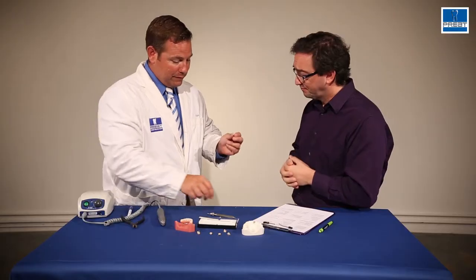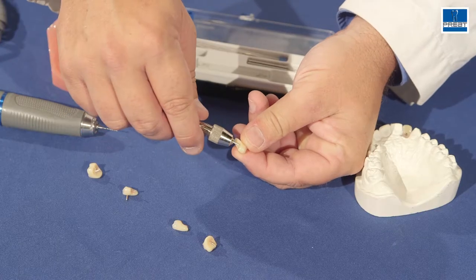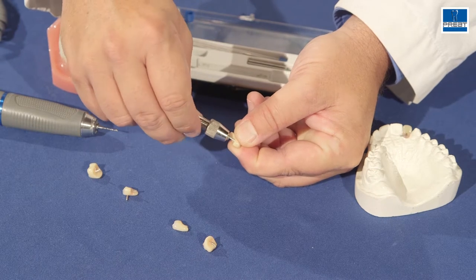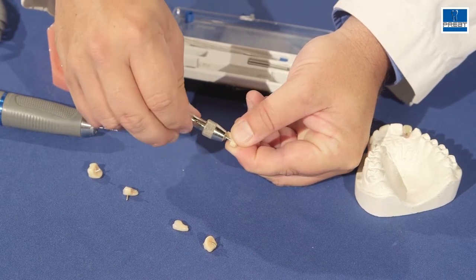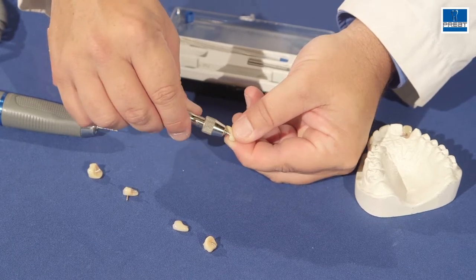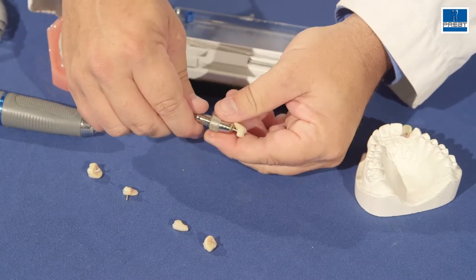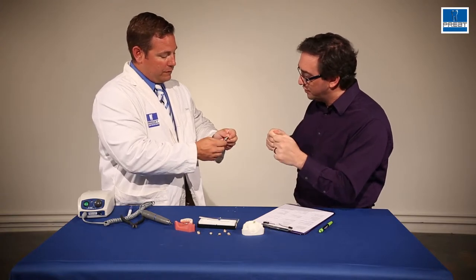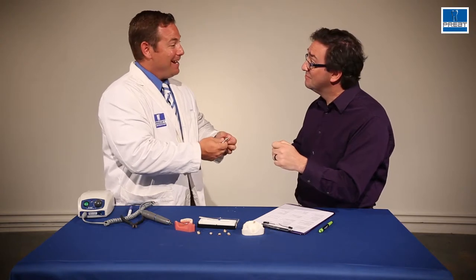Next, I'll take the threaded wire. I only want a little bit extending because it is silver — if you have a long length extending, it'll start to buckle and move. I'm simply going to thread this into the denture tooth up to where we see that blue marking on the wire. And that's already a solid bond — if you want to yank that thing off, you couldn't do so. I like to think I'm a pretty strong guy, and I can't get it out.